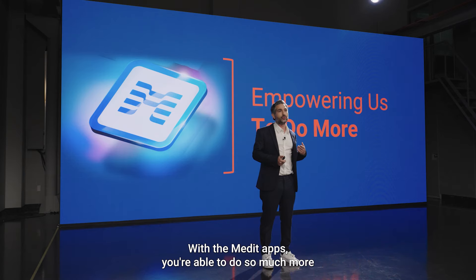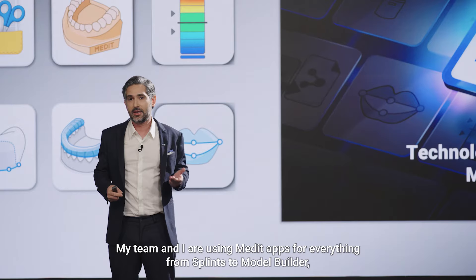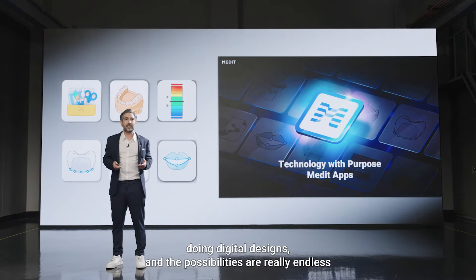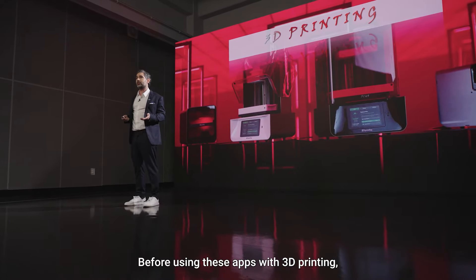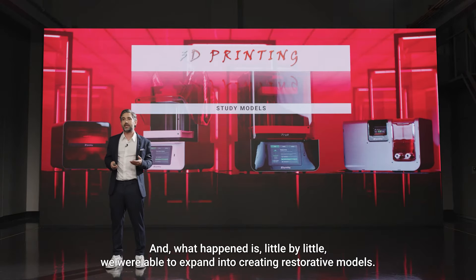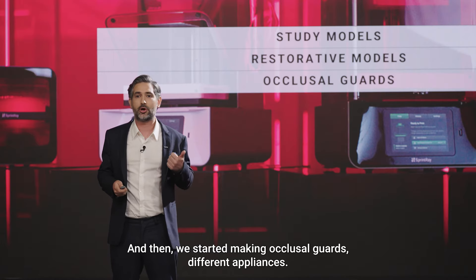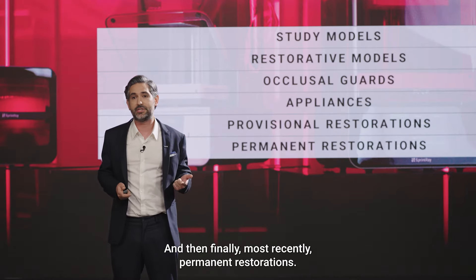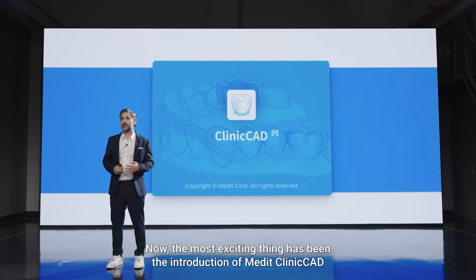With the Medit apps you're able to do so much more, and it's empowered us to create restorations and all kinds of products. My team and I are using Medit apps for everything from splints to model builder and digital designs. Before using these apps with 3D printing, basically all I was doing was creating study models or diagnostic casts. Little by little we expanded into restorative models, then occlusal guards, different appliances, provisional restorations, and finally permanent restorations — a huge game-changer.